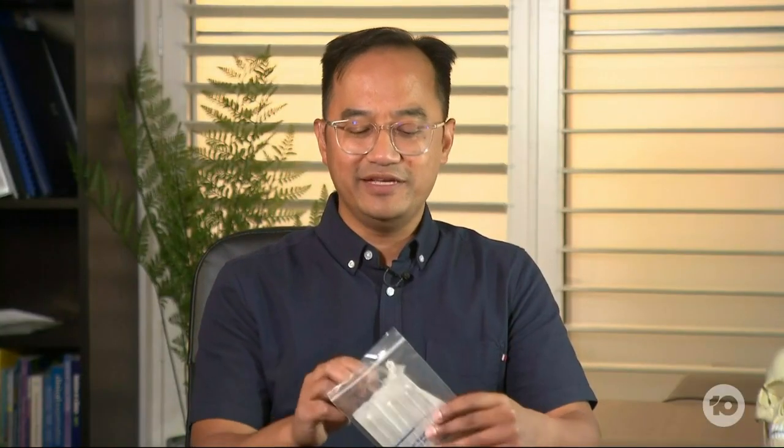You're going to do a demo for us now, I think. And we should stress that you're not using an actual RAT kit because they're in such short supply. And Susie Youssef's been hoarding them, apparently. Who's done heaps of them other than Susie Youssef? Tell us, or show us how it's done. Well, this is going to make wonderful dinner time viewing, I think.